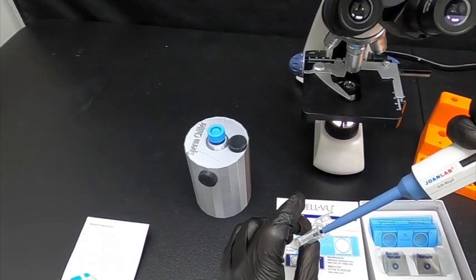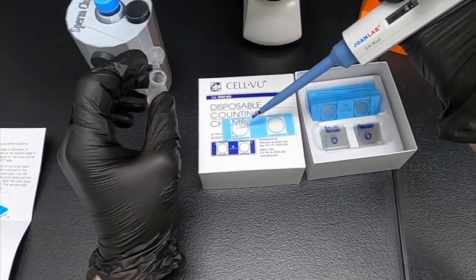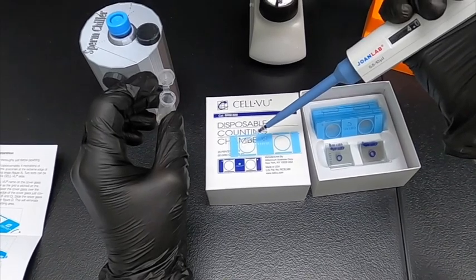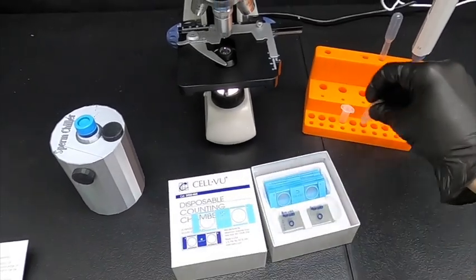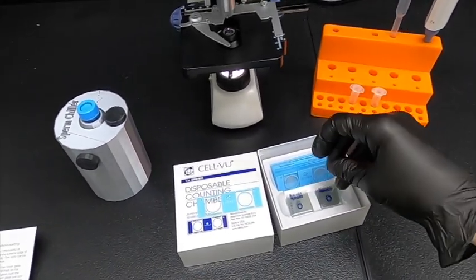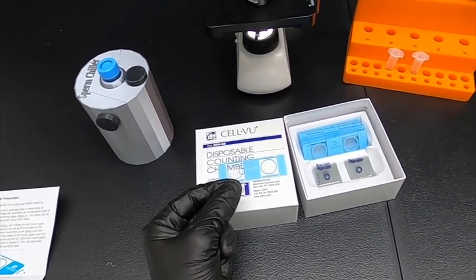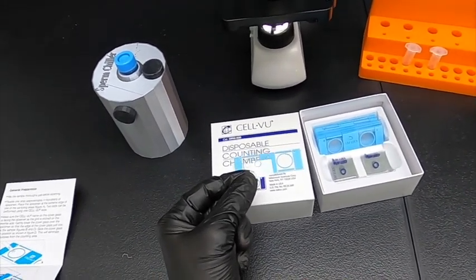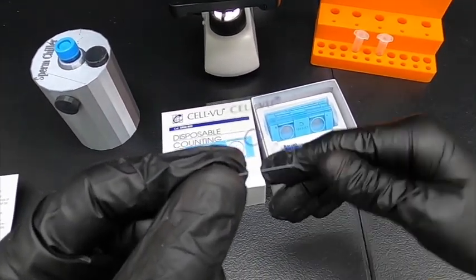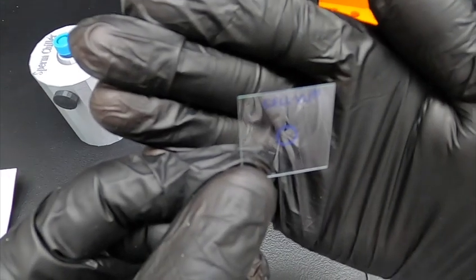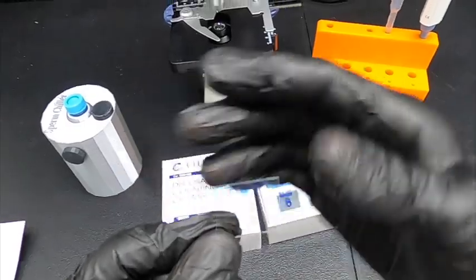We'll insert into the tube and place barely off-center to the left of the slide. Now the next step is to put the glass slide over the top and slide it out. Make sure the CellView name is facing up. You may be able to see with your naked eye that the slide itself is microscopically gridded. That's going to enable us to do the count.